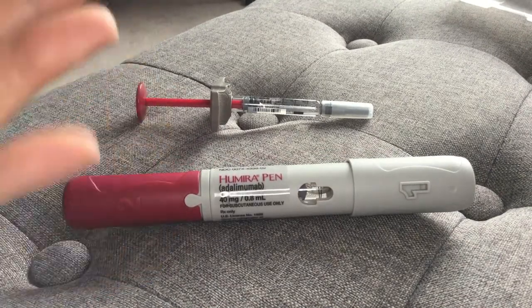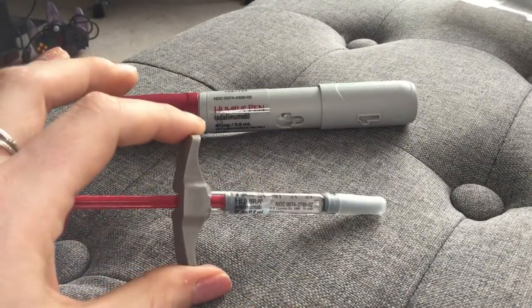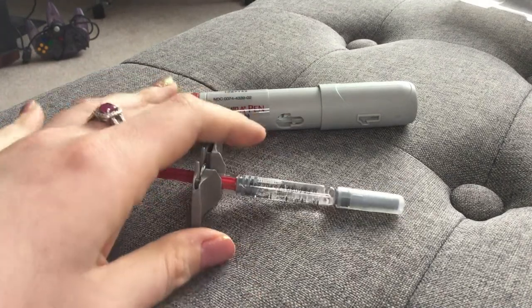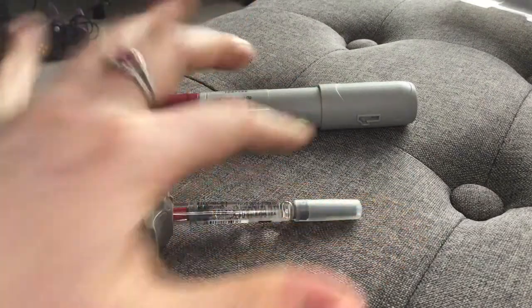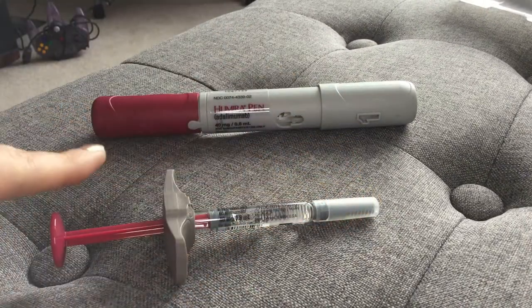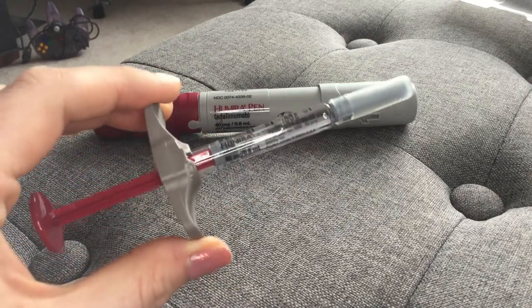You do what you got to do to make yourself healthy, right? So I started looking into syringes. I had a lot of questions and basically answered them all by doing one injection in a doctor's office with a nurse practitioner. She answered all my questions and right away I knew I wanted to do syringes. The same vial that's in the Humira pen is in the syringe, unless you've changed your milligrams — it's all the same, and the needle is actually identical too. What I like about the syringe is that you have a lot of control over the speed that you're delivering the serum into you.